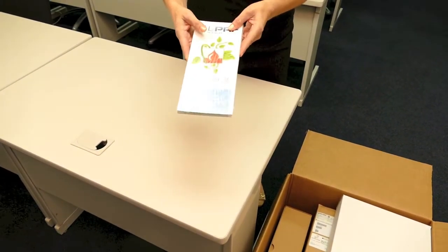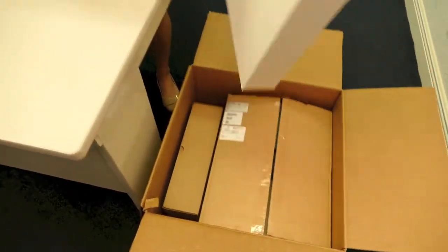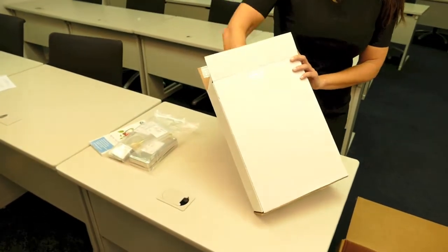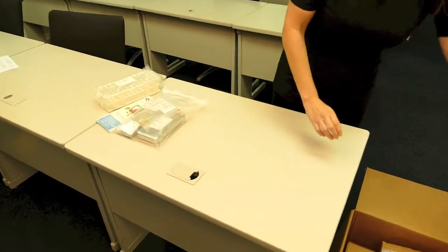First thing you'll see is your patient brochure. We're going to place that aside and move on to the next box. You'll find your instrumentation and your autoclavable vacutainer holder. We're going to place these aside and move on.